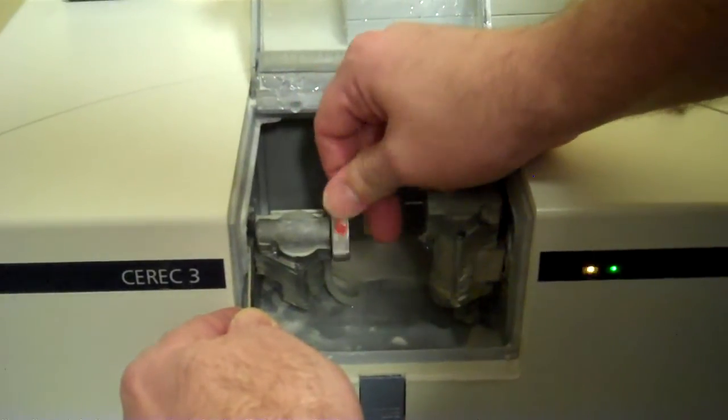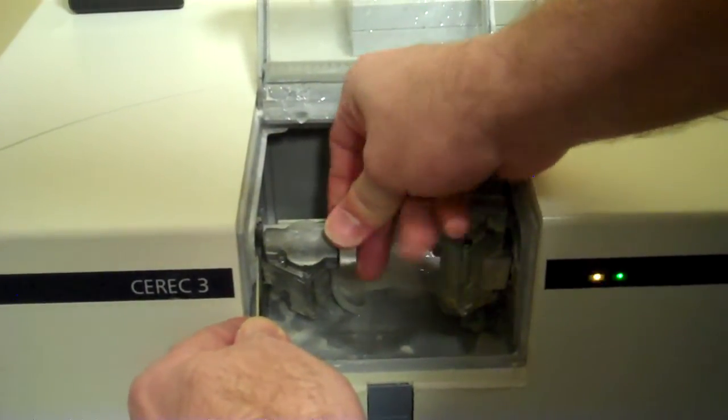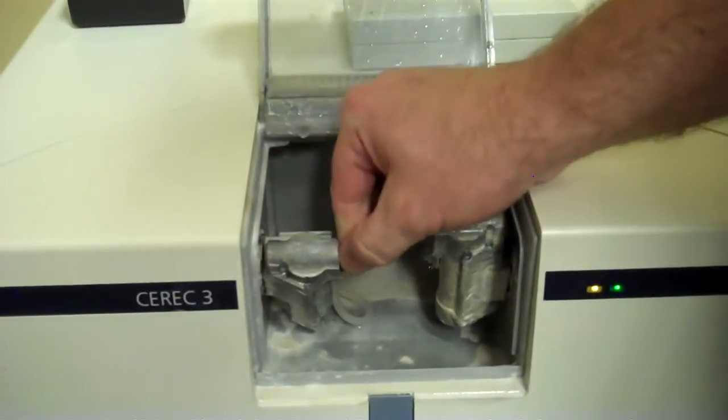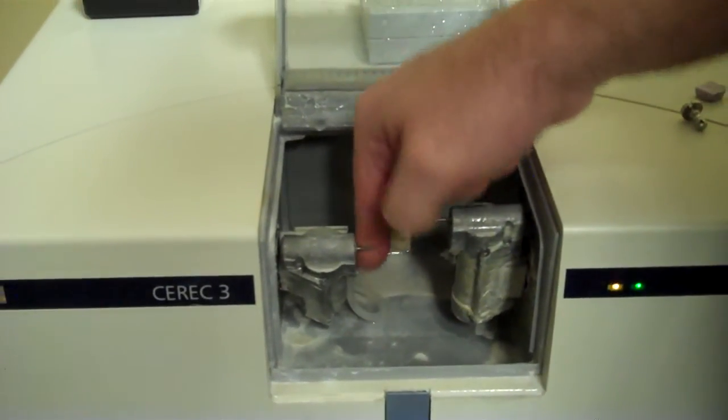And then at the end, you'll feel it want to stop and have a little bit of a click. And there it was, and that's how you change the burr. I always just kind of spin it to make sure it's free, but they're free.